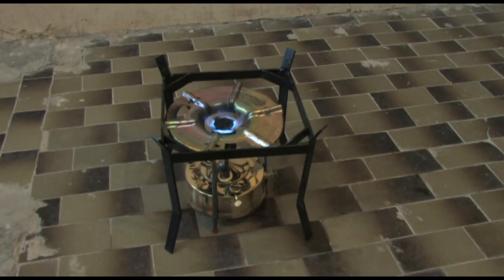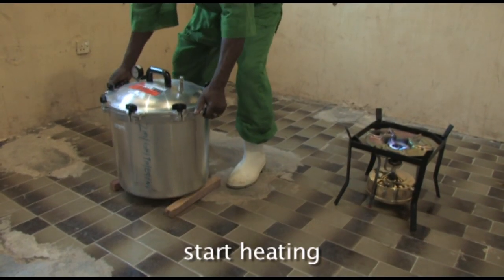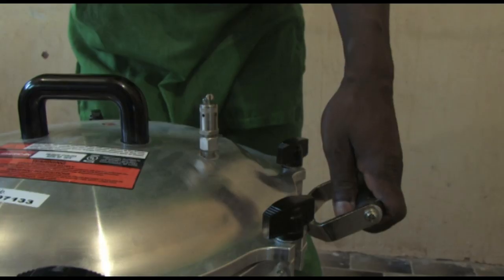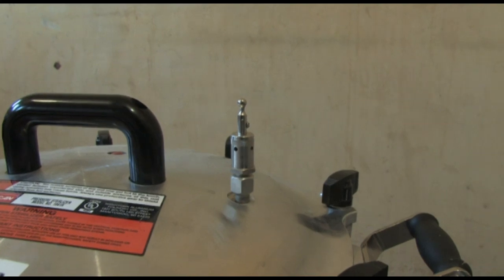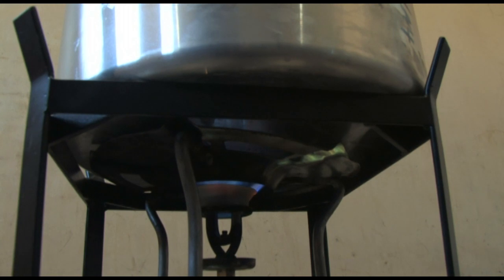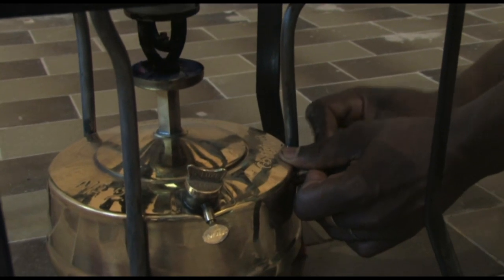The burner is now ready for use. To start heating the steriliser, place it on the stand with the burner. Open the control valve by placing the valve lever in an upright position. If you placed cold water in the unit, it will take approximately 35 minutes before steam begins escaping from the control valve. Throughout the time the steriliser is on the heater, keep checking the flame. When necessary, adjust the flame by loosening the air screw or gentle pumping.